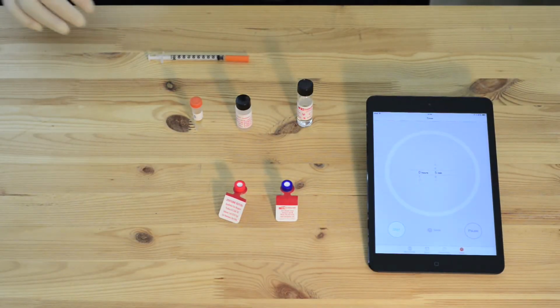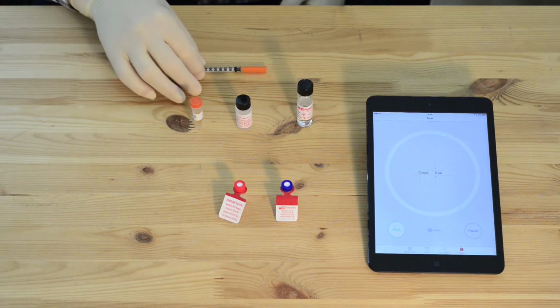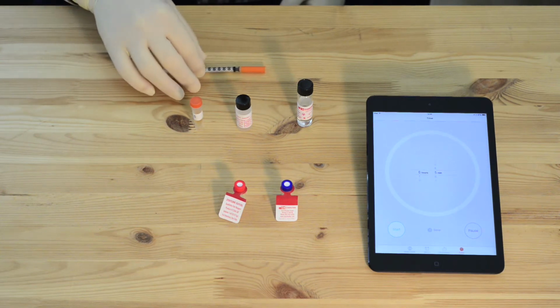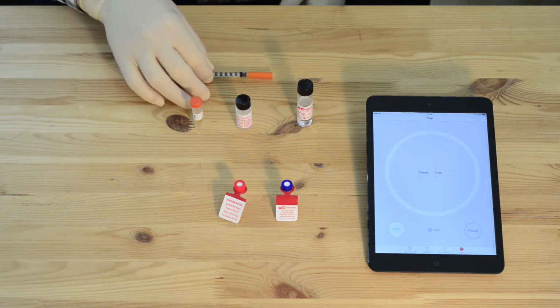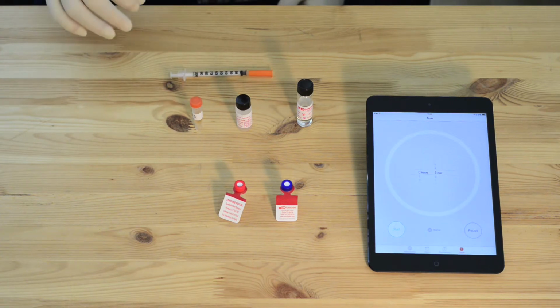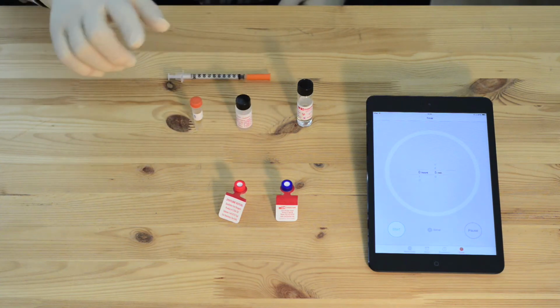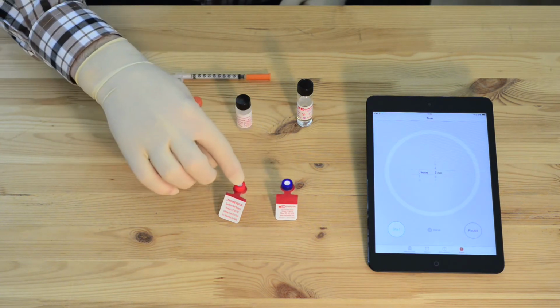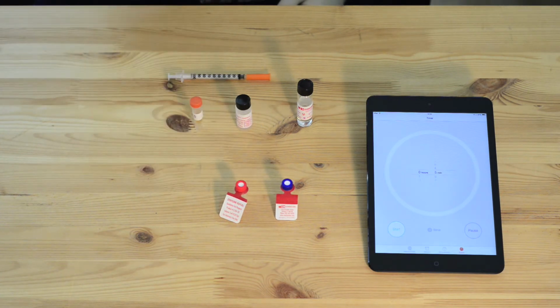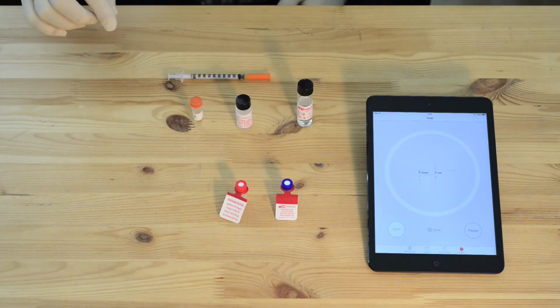Catachem's qualitative ethylene glycol test is based on its quantitative test. It's an enzymatic determination of ethylene glycol. The test kit comes with 3 syringes and 6 vials, 3 for reference and 3 for the sample. Each time the test is run, the sample is run against a reference.